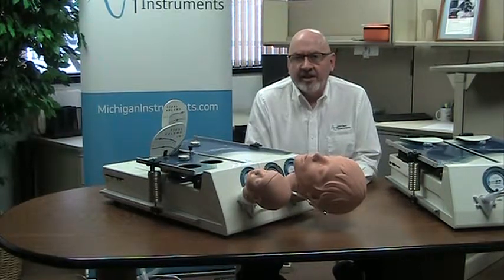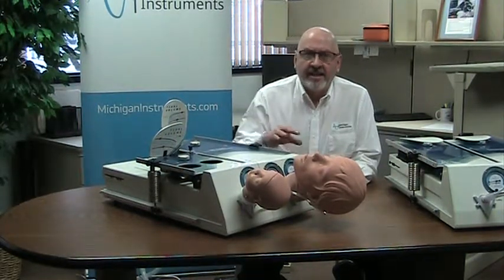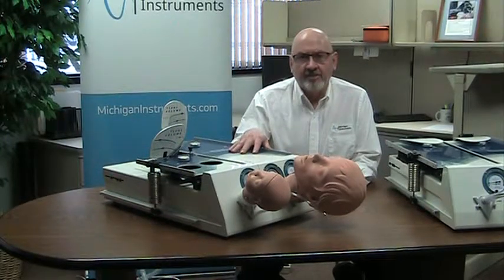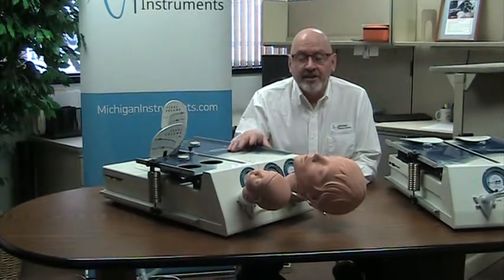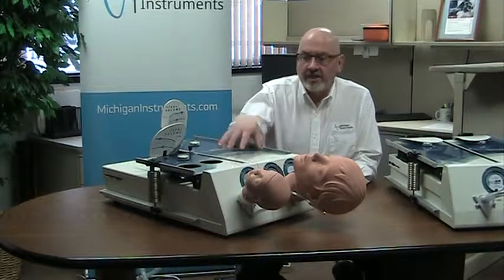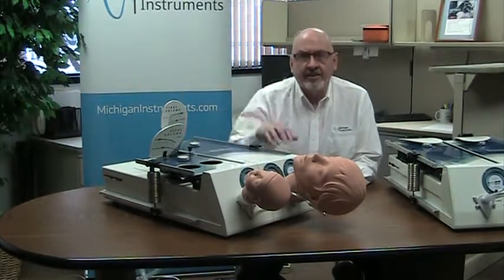Hi again. I wanted to talk to you for just a minute about the adult infant lung simulator from Michigan Instruments. This unit incorporates one adult lung and one infant lung in a single unit.